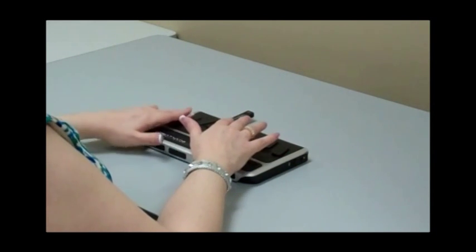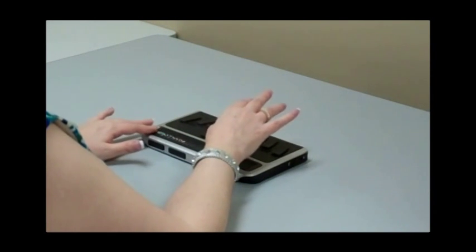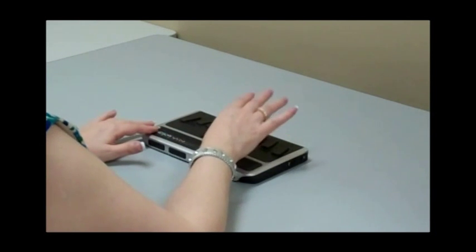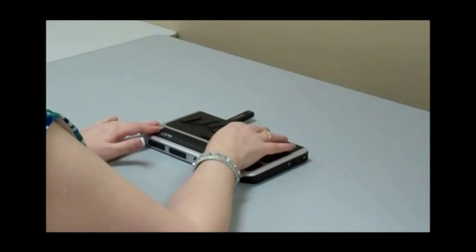In addition, let's see. Main menu. We are at the main menu. So I'm just going to go through the menu real quick, and then I'll show you what some of these things are. Word processor. That is the word processor, where you can write and edit your documents. Planner. Now this is something I use when I need to schedule appointments and I need to know exactly what time they're going to be. I can set an alarm just like you would in a typical PDA or a typical smartphone, an iPhone or whatever.